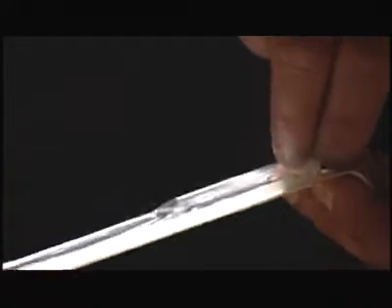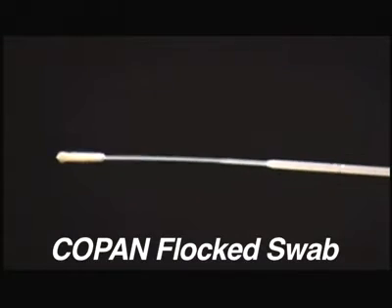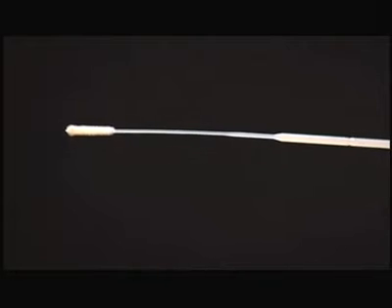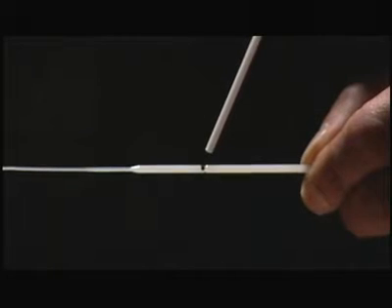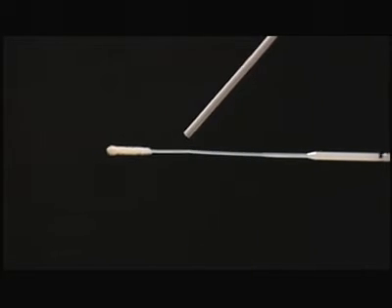There are different parts to the swab. Open the container where it says peel here, which is the side away from the collection end. As you can see, the swab has a furry tip, and studies conducted at the provincial laboratory and from the literature show that this feature increases the removal of cells which are both infected and uninfected, thereby lowering the rejection rate of unsuitable samples and improving the positivity rate. The shaft of the swab has a thicker diameter at one end where you hold it, and it progressively narrows to a thinner end, culminating in the furry piece.